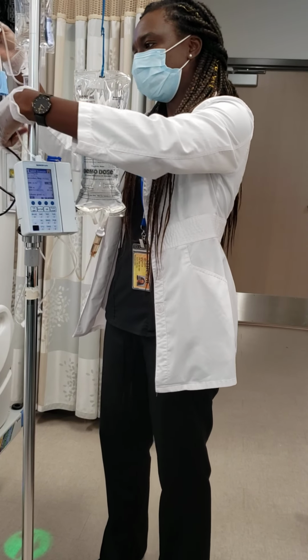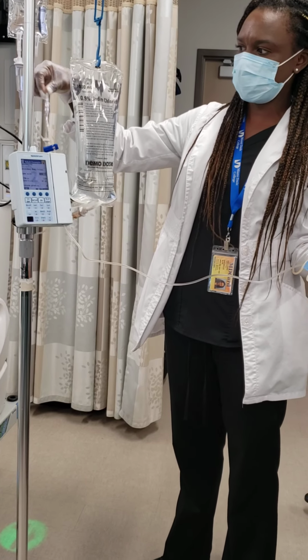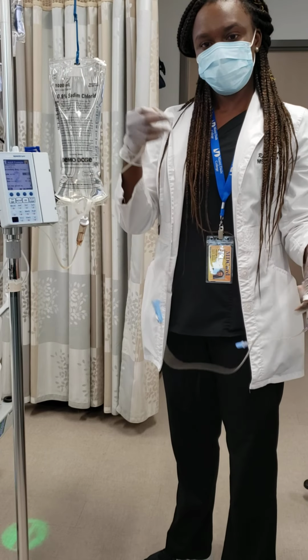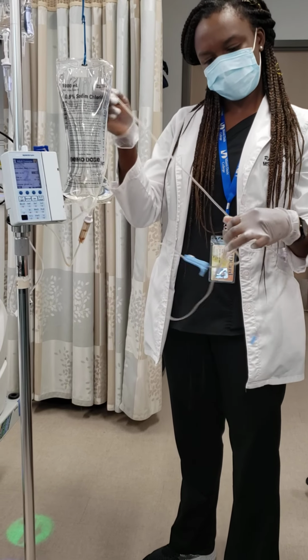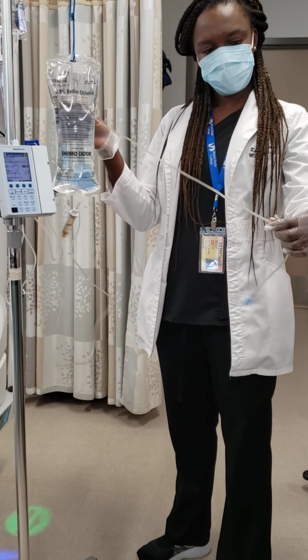But as of now, nothing's going to be infusing in there, because you have your secondary connected here. Professor, if you push it, it's important to kink it above? Yeah, for example, if I'm going to do an IV push of something, I have to clip it? I have to kink it, right?